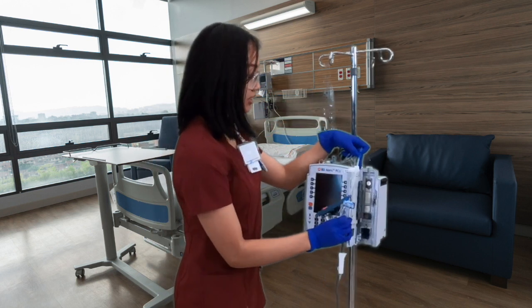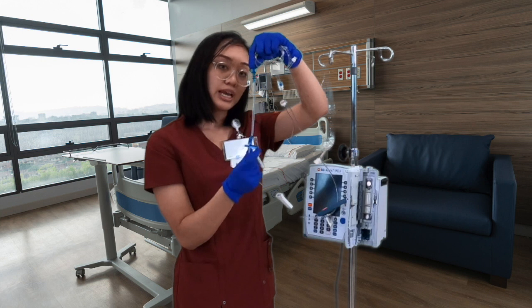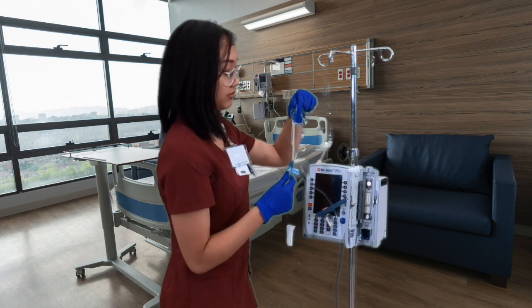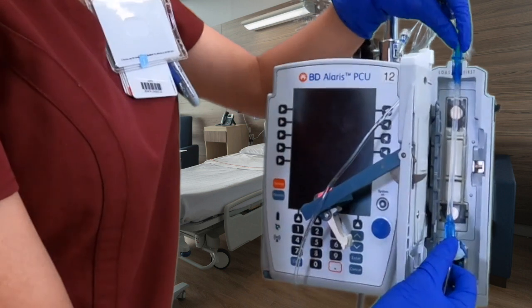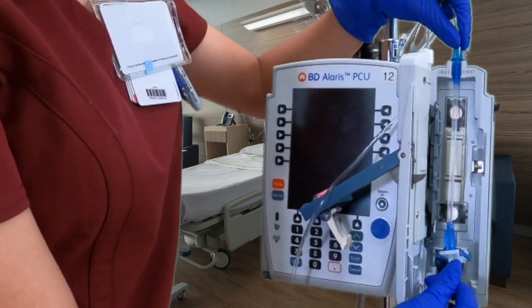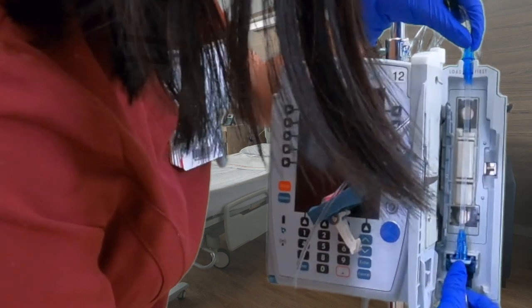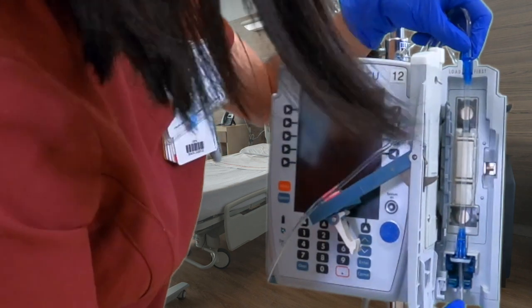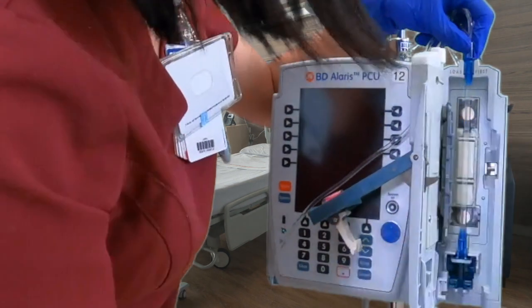Alrighty. So the next thing I'm gonna do is there's 2 parts. There's a key portion, and then there's this little tab on top. This tab goes on top, and this key goes on bottom. Okay, so this goes on top. You can't go in through the side, so go in on top. And then you're gonna stretch. This is stretchy, so you're gonna stretch and put this in the key port at the bottom, and it should click. And then, last but not least, we wanna make sure that this line below is clamped in right here. So it should be one straight fluid motion here.